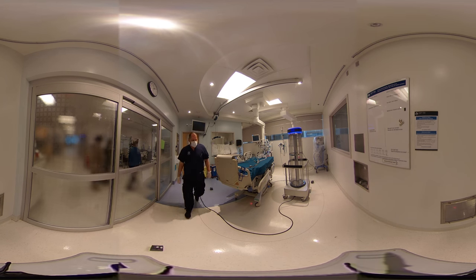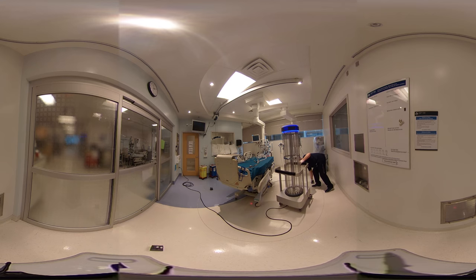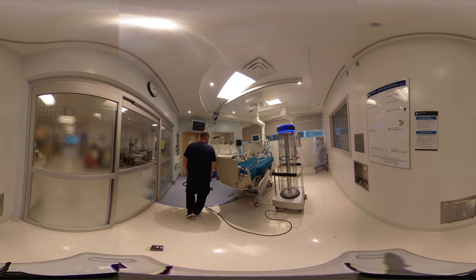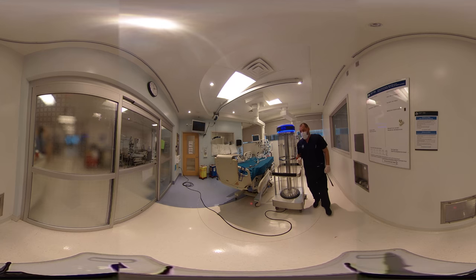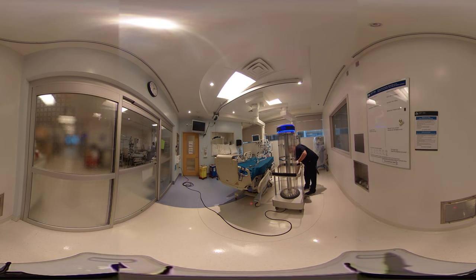Sensor four has now reached its target ratio. The second most important part is putting the machine away — and I can't stress enough, do not forget the sensors. Every sensor has its place inside the machine; there are four sensors, so make sure you collect all four. Also very important: the door sensor, which is on the outside. Once you leave the room with the machine, make sure to collect the door sensor or you won't be able to operate the machine next time.